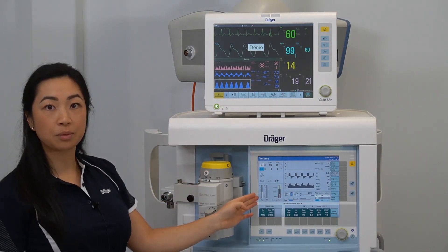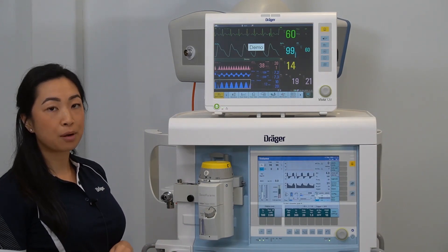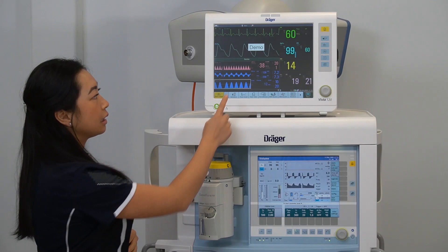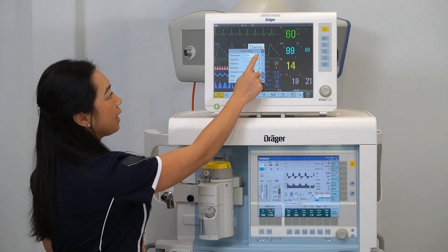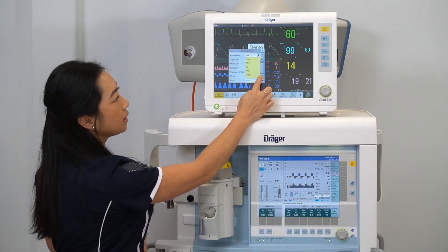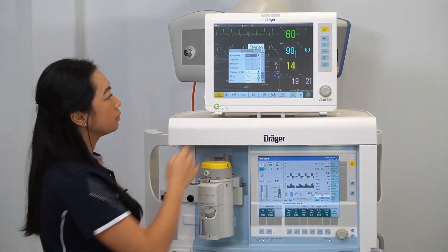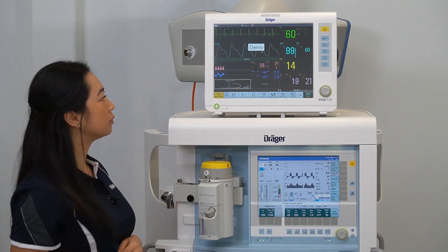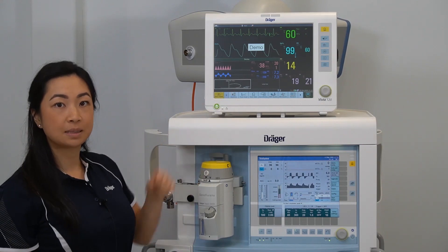To adjust the parameters being displayed on the screen, you can click on a waveform, select the drop-down arrow for parameter, and select from the list of options. Now you can see loops being displayed.